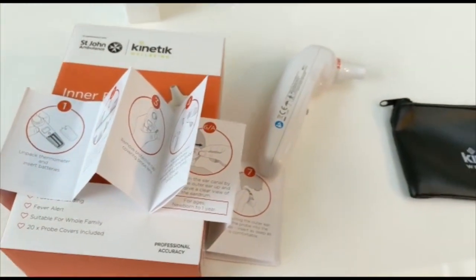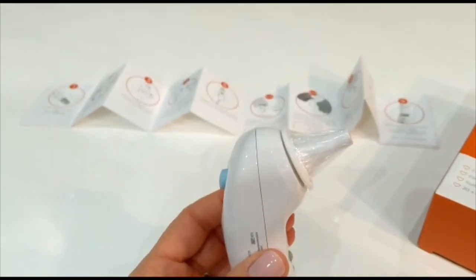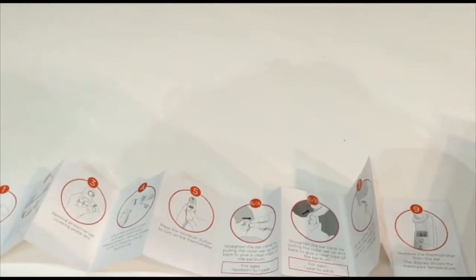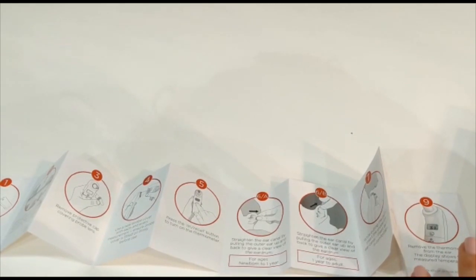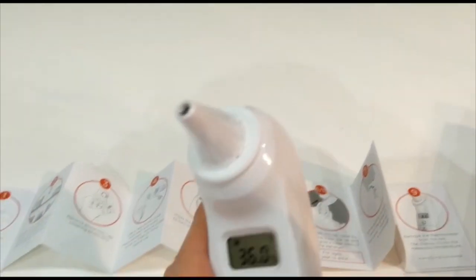So how does it work? Here we have the thermometer with the disposable cover on the top for hygiene reasons. The user guide is here. I am someone who does not like reading instructions, so I usually get straight to it and usually then I get stuck and have to read the instructions anyway. But this actually is really easy to use, so I've not needed to do that.